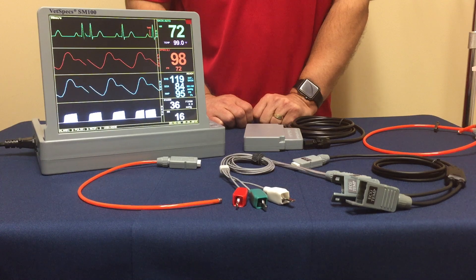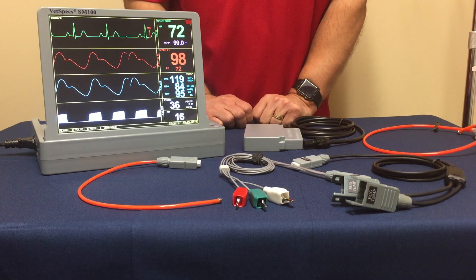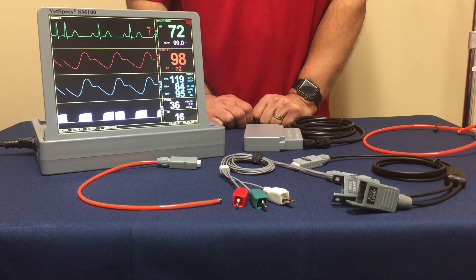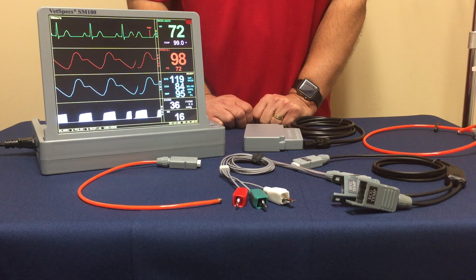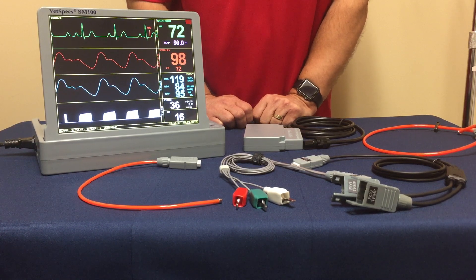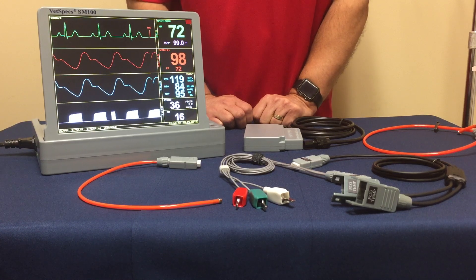What is happening — and we've spoken with VetSpecs management — more and more veterinary practices are using these multi-parameter systems in dentistry. With that comes the need to obtain not only the ECG heart rate but also temperature from the patient for these dentistry procedures.